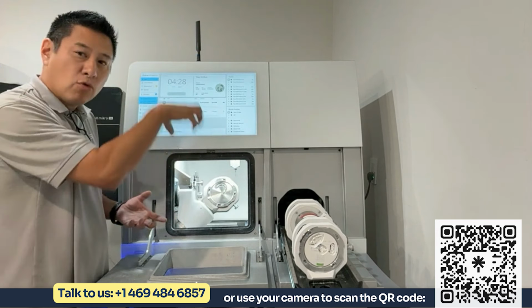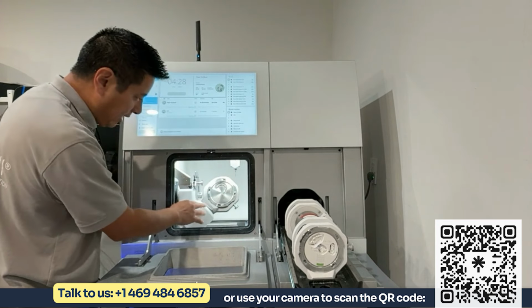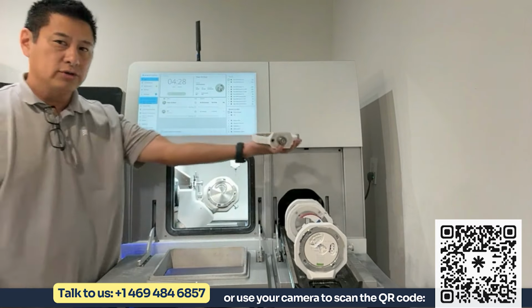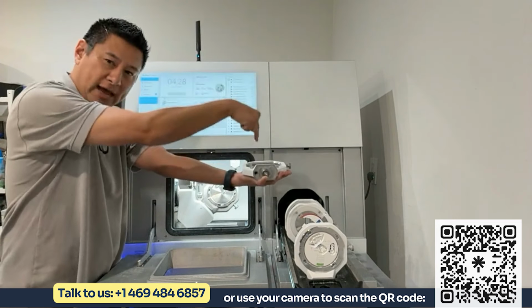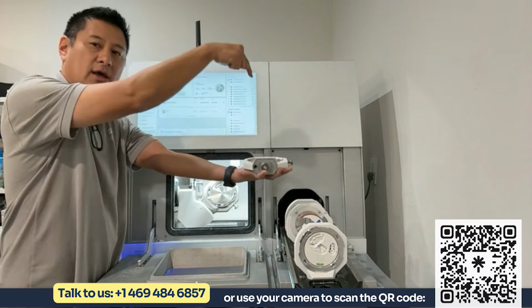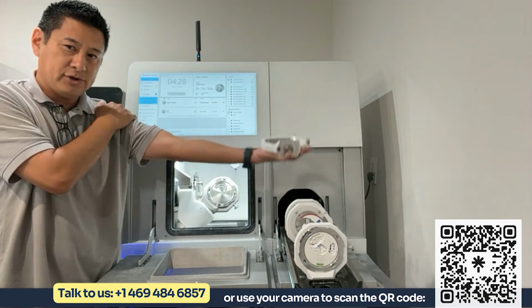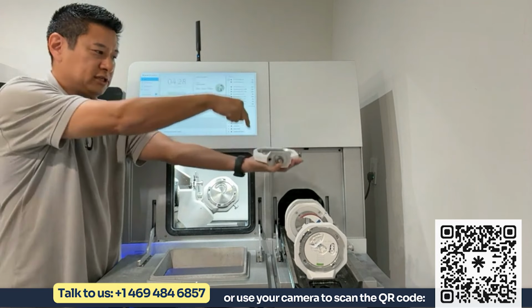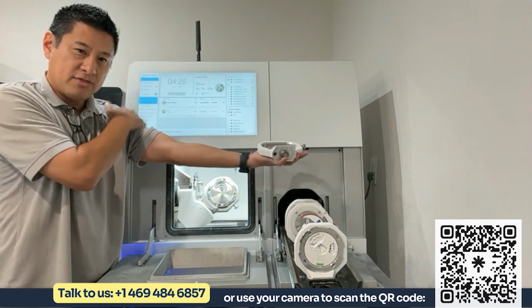So more torque, more power in this spindle. And if you look at when you're milling something and you're holding a puck like this, and the machine is pushing down and it's putting a lot of torque and a lot of pressure, you can imagine all the pressure that's on my shoulder that is putting a lot of load here, which causes movement and vibration and stress on this arm.